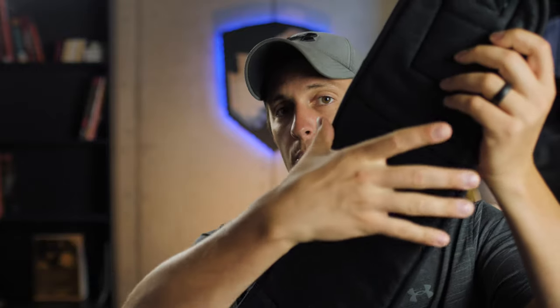I have a SAM pelvic binder here. Really what it is is just a wide sling that we put around the pelvis — a wide band holding the pelvis together. It's nothing fancy, and we can use sheets and blankets if we don't have one of these commercial devices available.